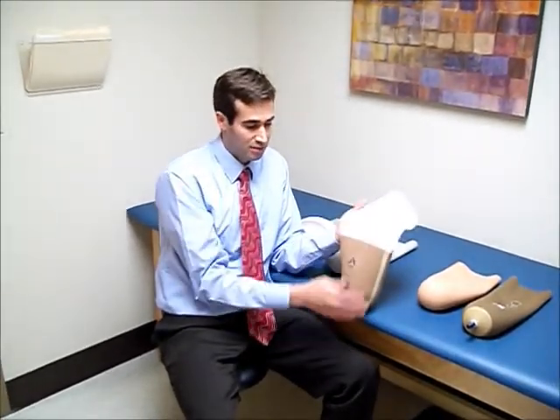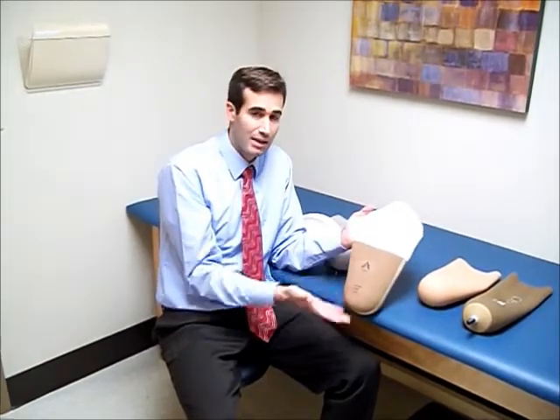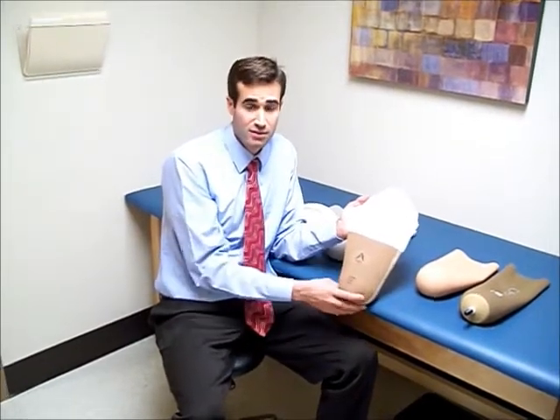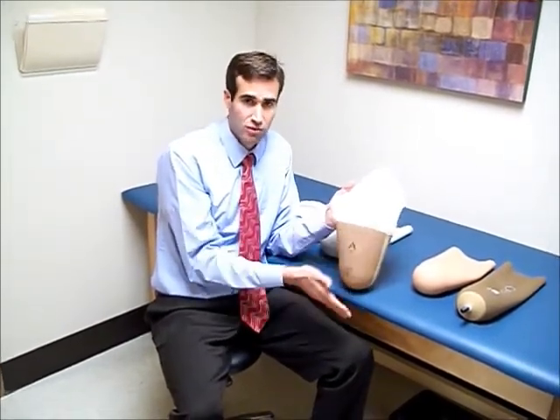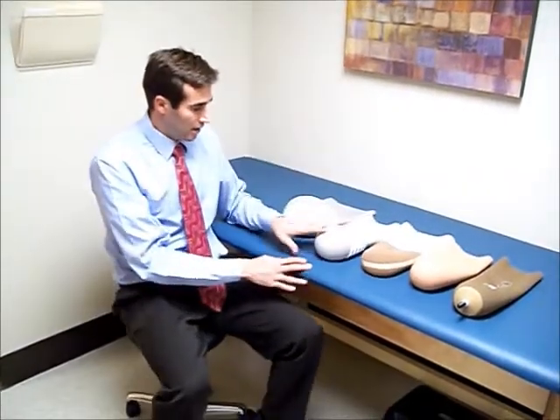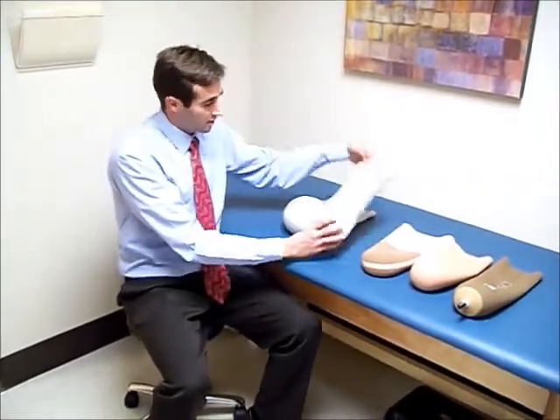There are some other types that are half fabric and half gel, so you can maintain suction but also have some of the benefits of fabric. The fabric allows it to slide into the prosthesis without a sock if you're in a zero-ply socket fit, and it also makes it slightly easier to roll the liner onto your leg.